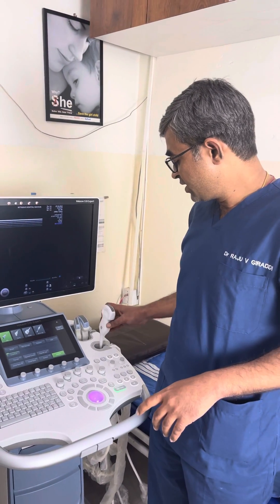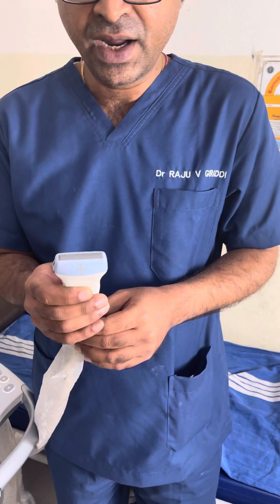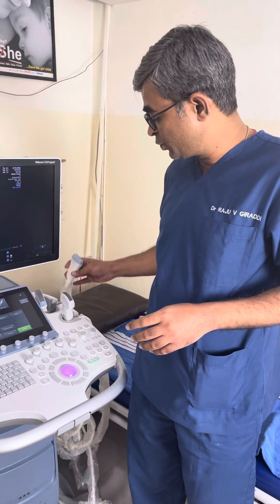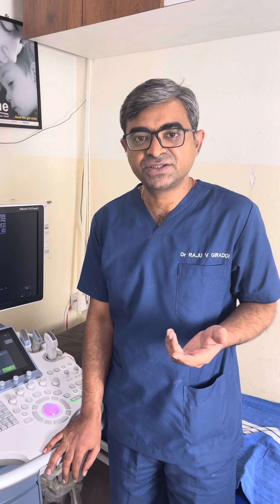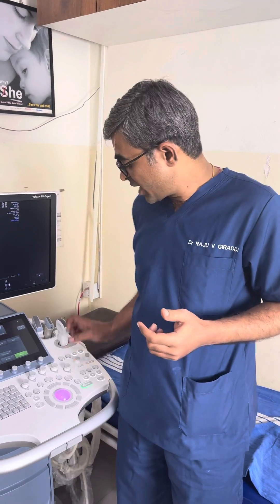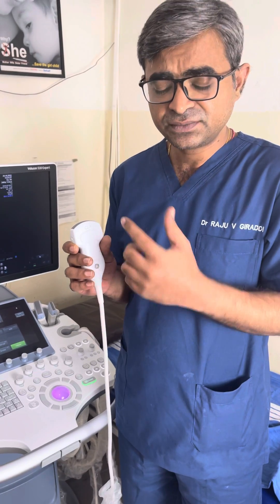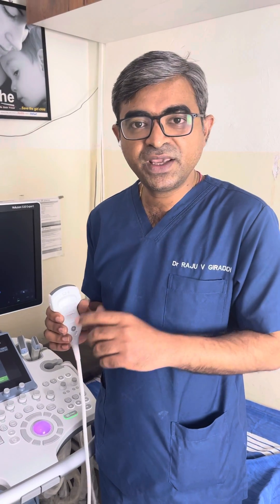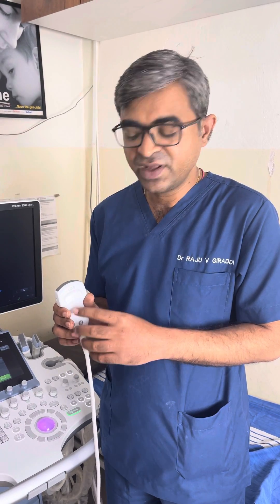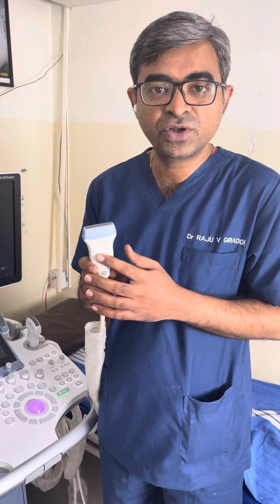After that, we have linear probes. They don't have a curvilinear structure but are straight, and these linear probes are actually high frequency probes ranging from nine to eleven megahertz. The key difference is that ultrasound is frequency above our hearing range. These probes have piezoelectric crystals inside which, when an electric stimulus is transmitted, make vibrations and produce echoes. Higher frequencies depend on the depth of the tissue for their reflections. Higher frequency probes are more important for superficial structures.